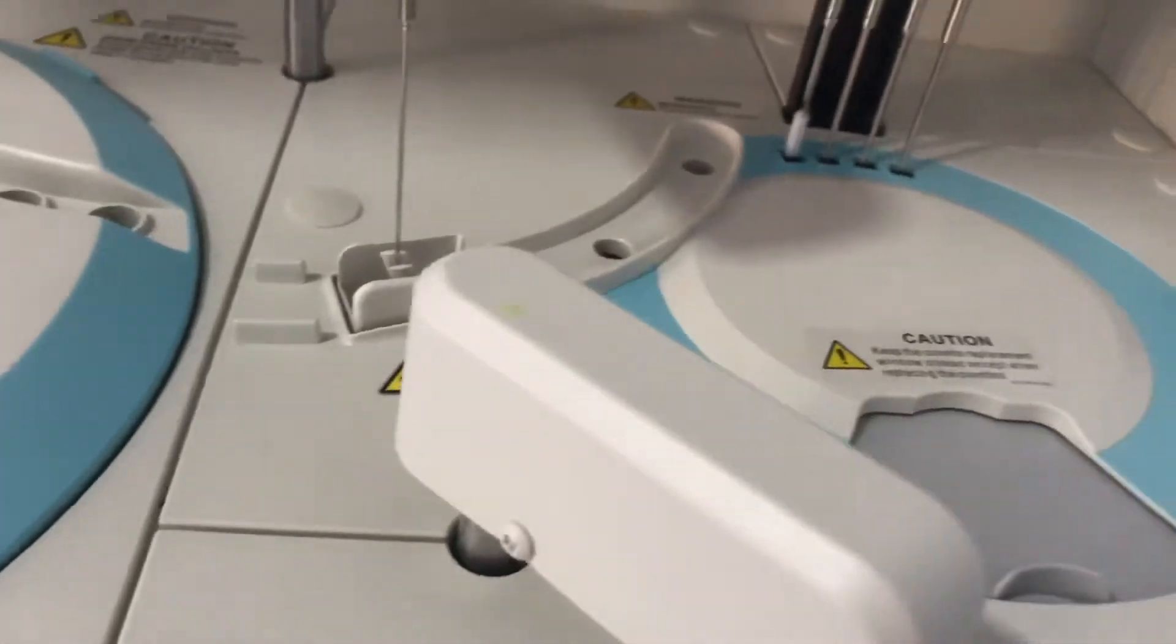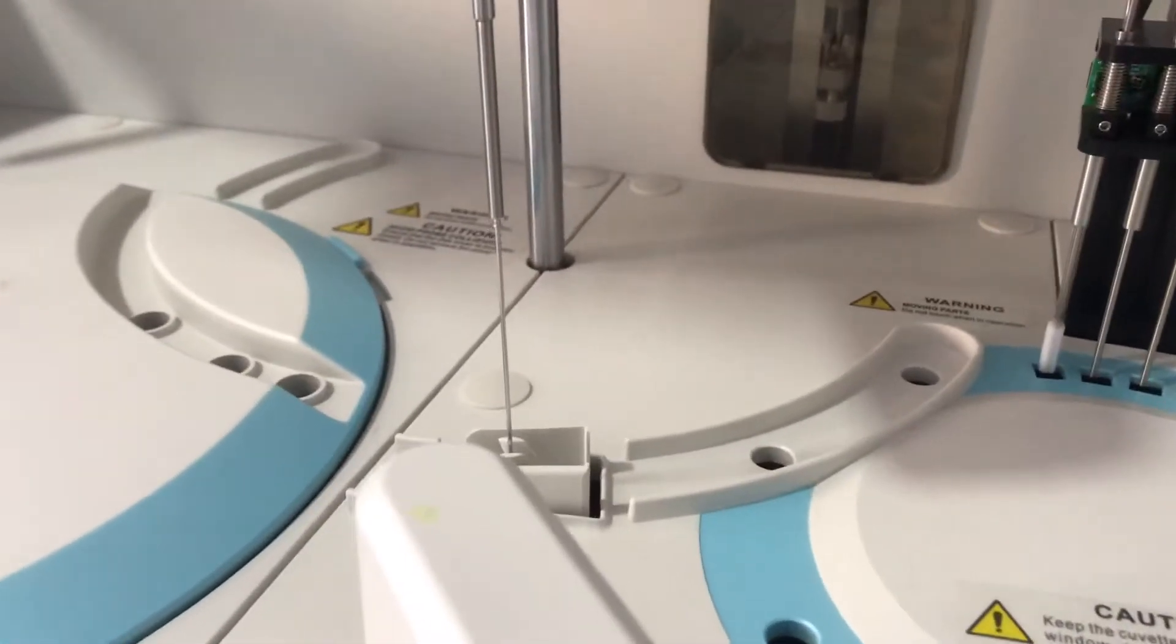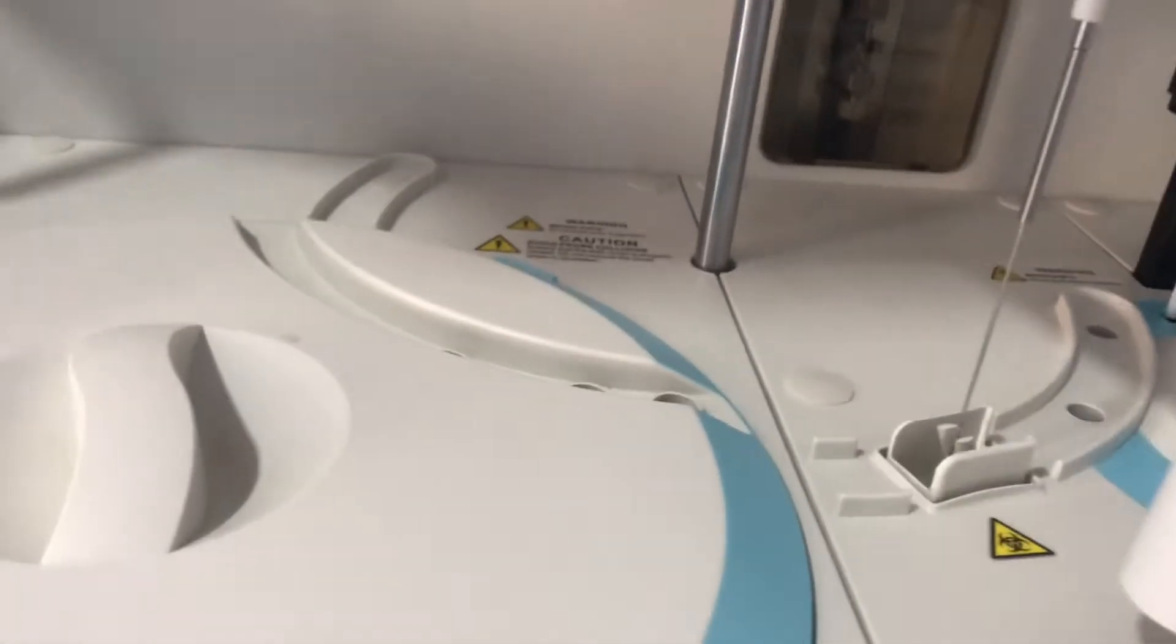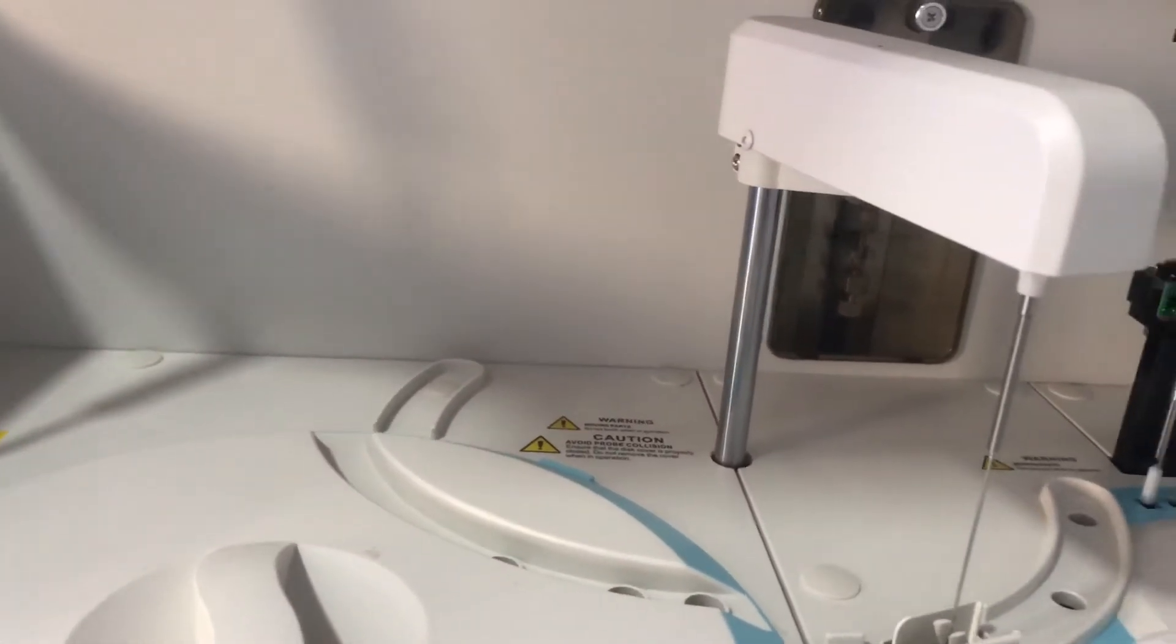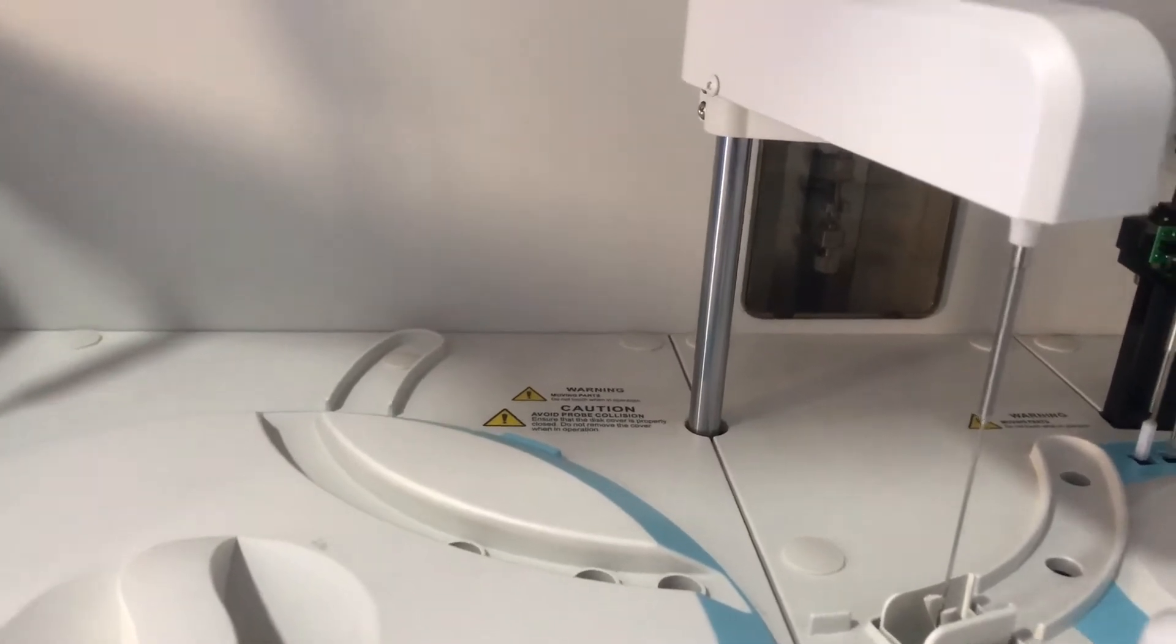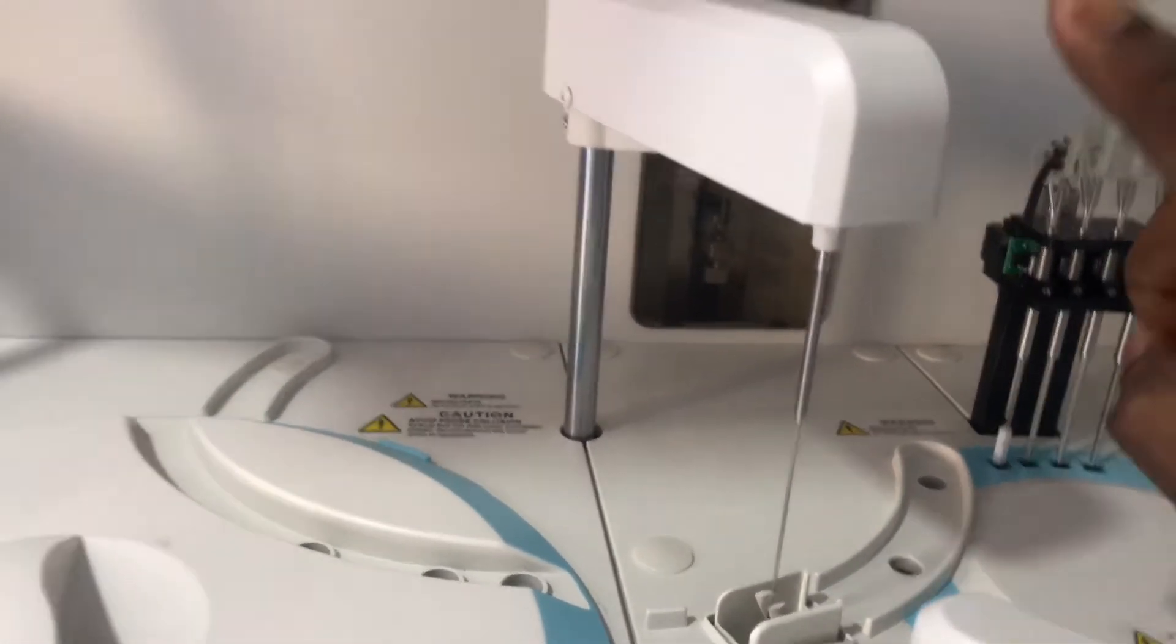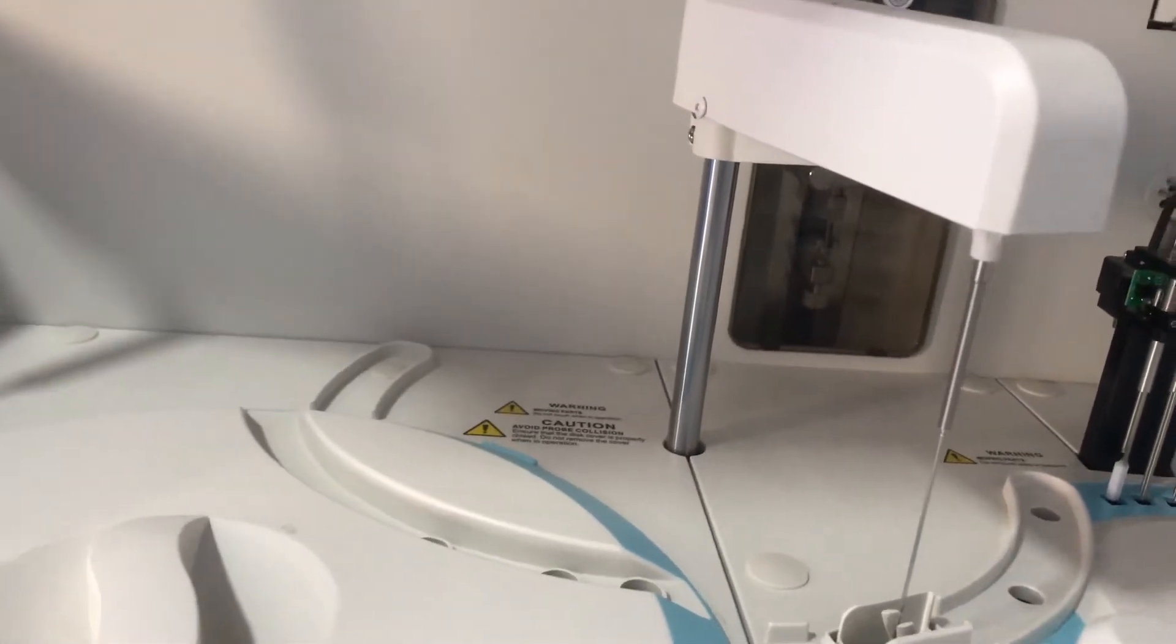After it does its work, it comes back to the wash well where it's washed. Apart from dispensing sample and reagent, it also has vertical detection which helps it to detect any obstruction in its vertical path.